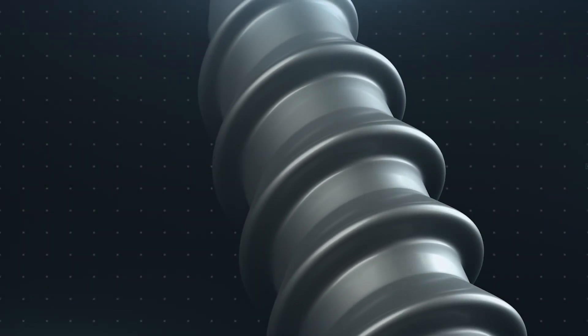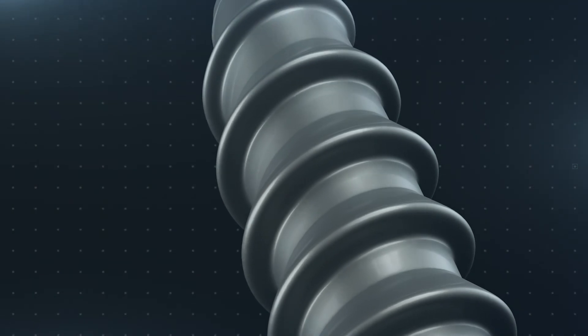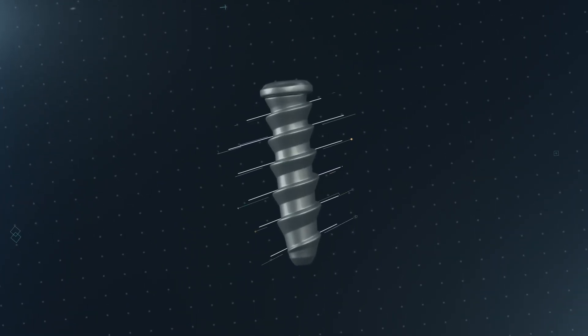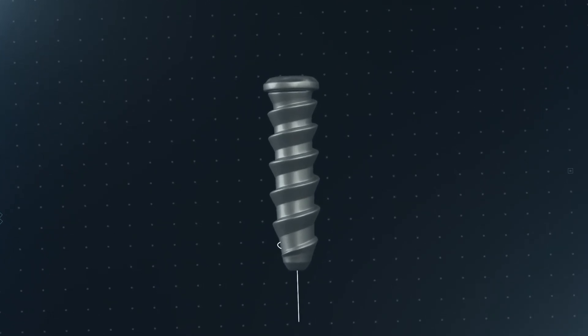The screw has fewer threads as compared to a constant pitch screw, whereas the thread angle and pitch have been carefully engineered to achieve the required fixation strength with optimal interference.